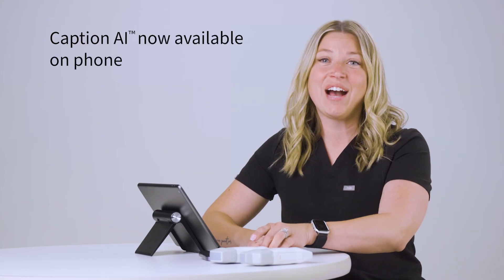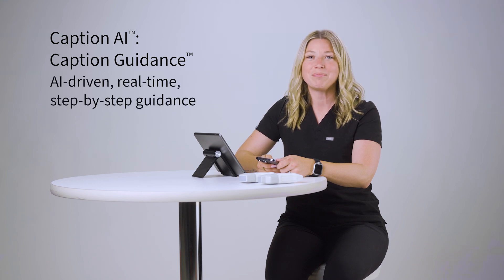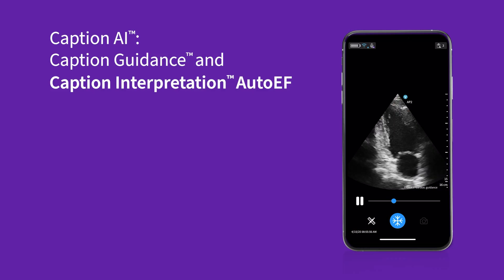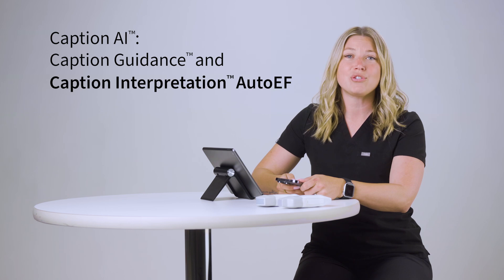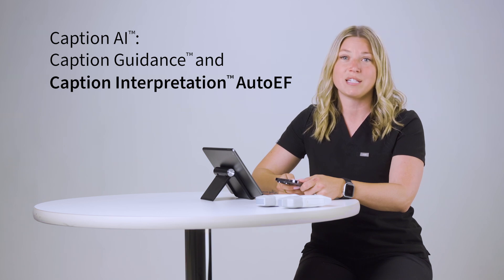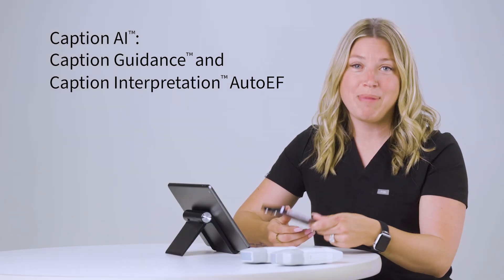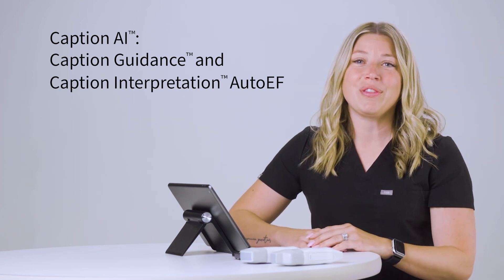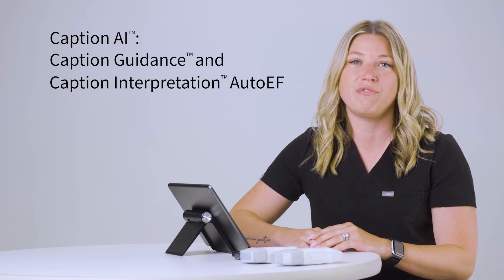Next up, we are happy to announce that Caption AI, our innovative cardiac solution released last year, is now available on your phone. Caption AI offers cardiac guidance which delivers AI-driven, real-time, step-by-step guidance for a focused echo at the point of care. Caption AI also brings a breakthrough deep learning algorithm for easy and rapid ejection fraction estimates on vScanAir called AutoEF. Its deep learning algorithm is trained to mimic the intuition of experienced clinicians and offers a fully automated parasternal long axis ejection fraction assessment designed with POCUS users in mind, along with AP2 and AP4. All this is now available on compatible phones in addition to tablets, helping to make early detection for timely intervention even more possible than before.